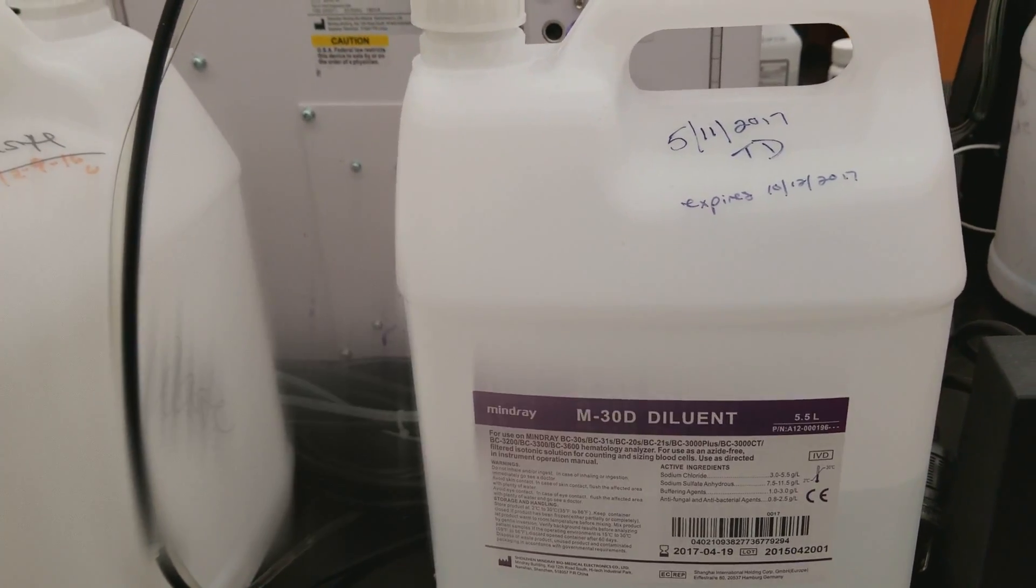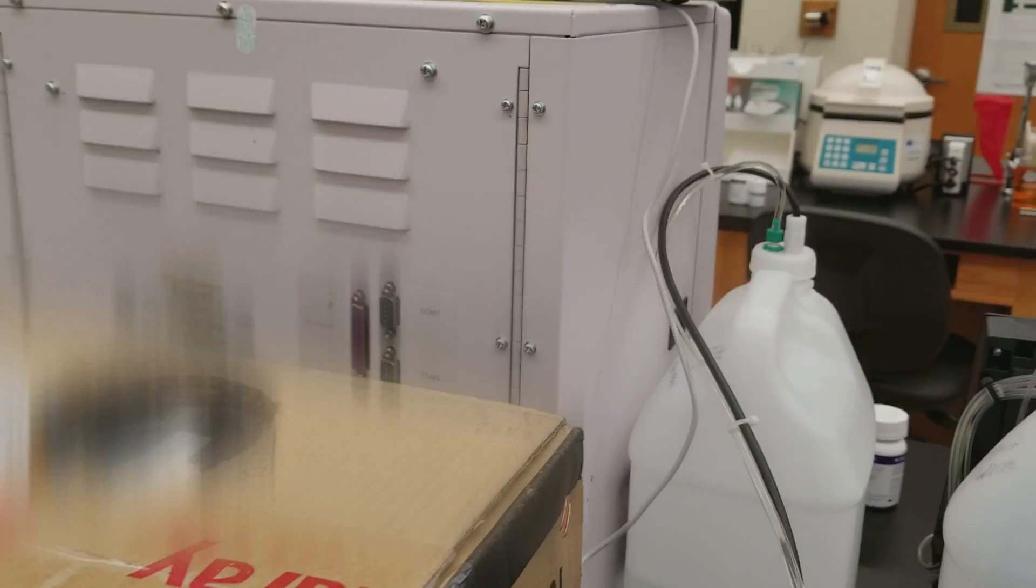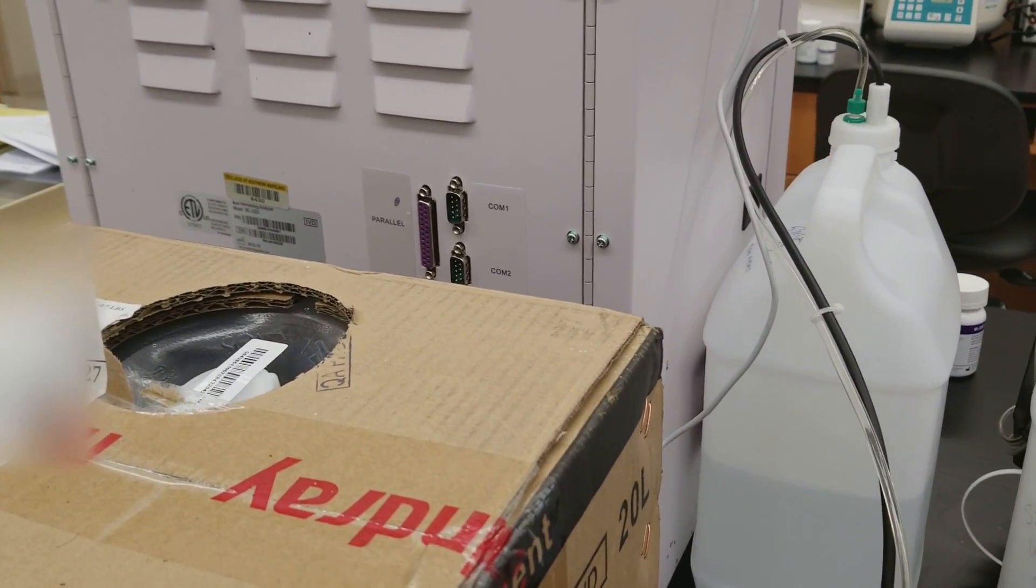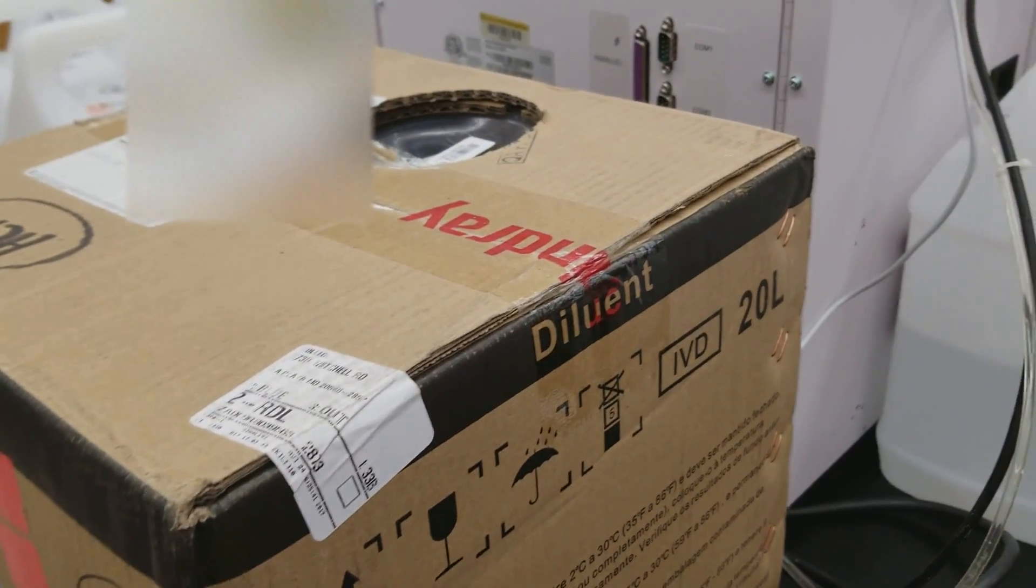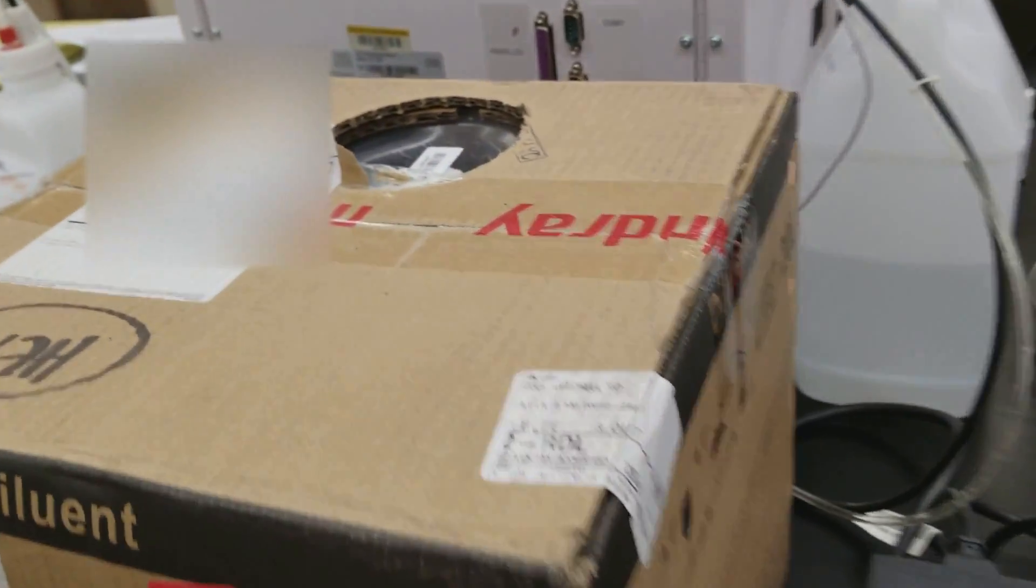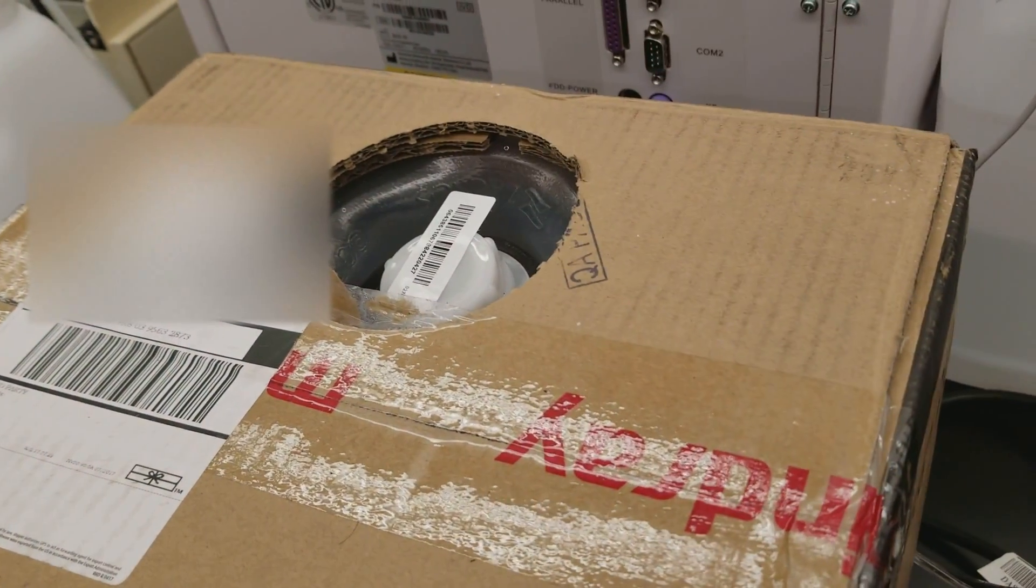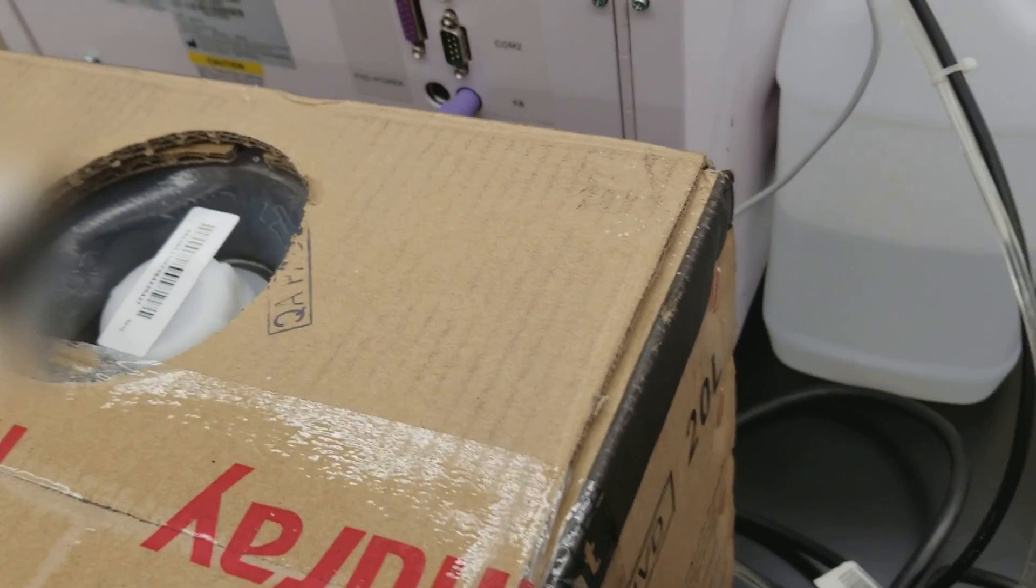We'll end up running a little bit of a cycle. Okay, so I'm back. We have a different kind of diluent now that we use, it's the same thing, it's just bigger. I had to pop this out, this thing is like 47 pounds, so it took me a little bit to get where we are right now, but we're good.